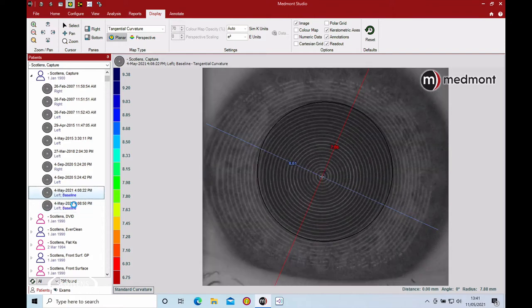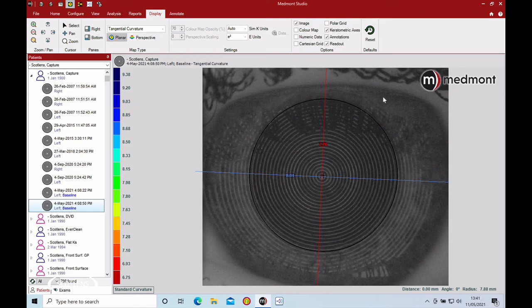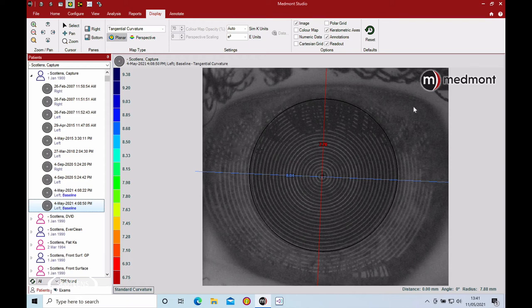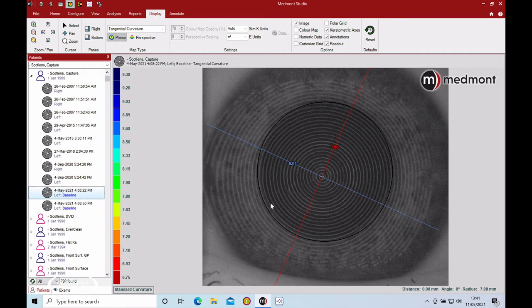This image has interference coming from the top lid casting a shadow, and you see that the eyelashes are going to mean we're going to lose good data at the top. So this is a good quality map where the eyelids are out of the way, and this is possible with this patient.